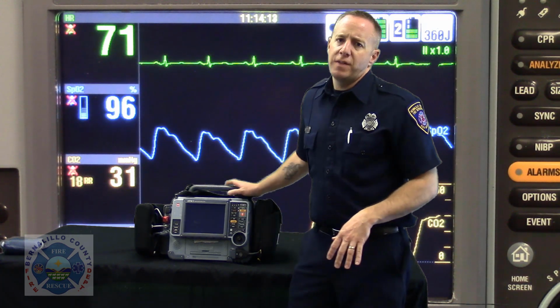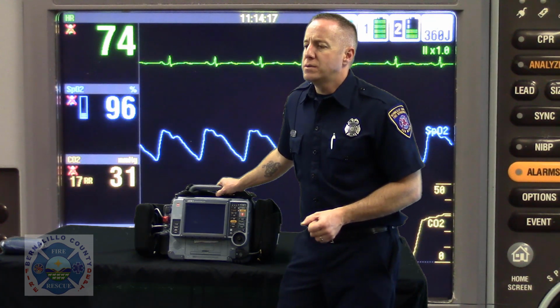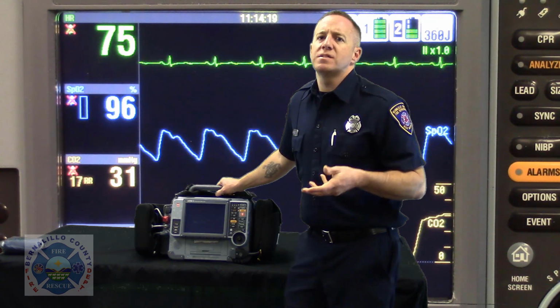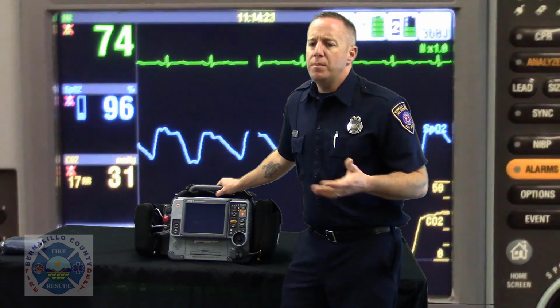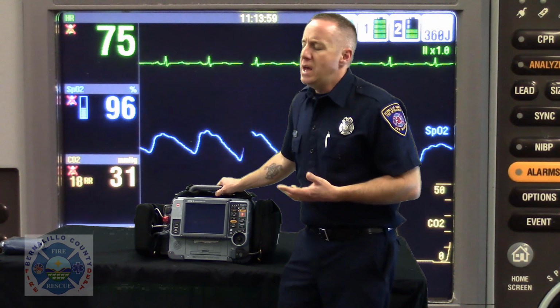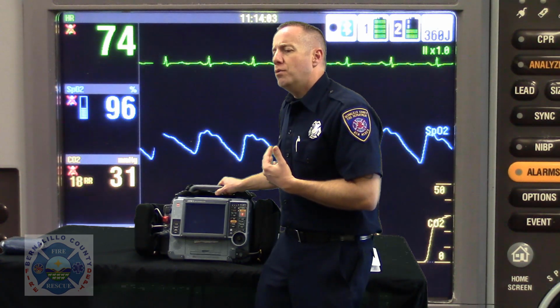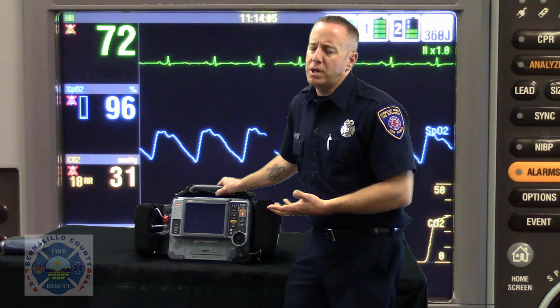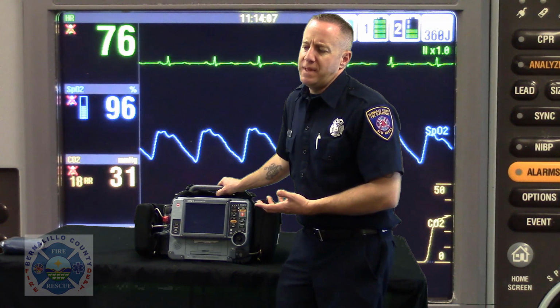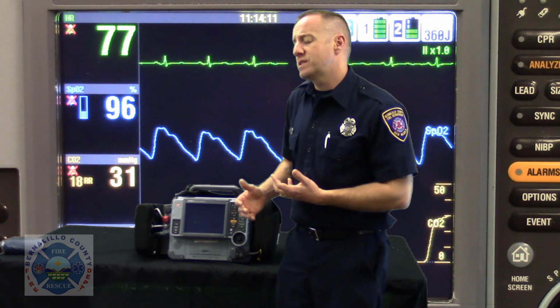So Lifepack took that and wanted to make the patient assessment system very systematic. If you come into a patient's home or a business or wherever you're going to encounter your patient, and you set yourself up for assessment and intervention within the first few seconds of making patient contact, that's going to do you well to make sure that your interventions are done on the correct side.